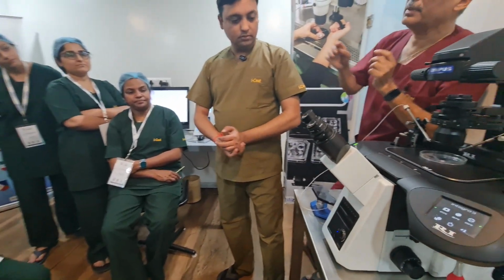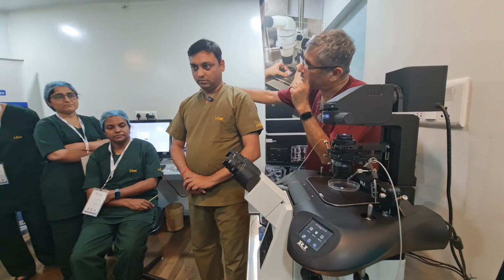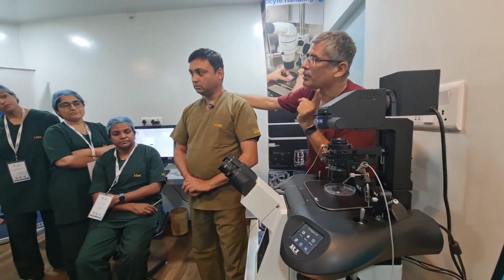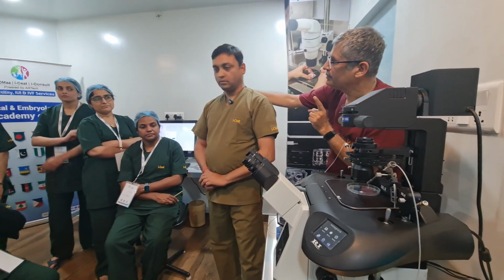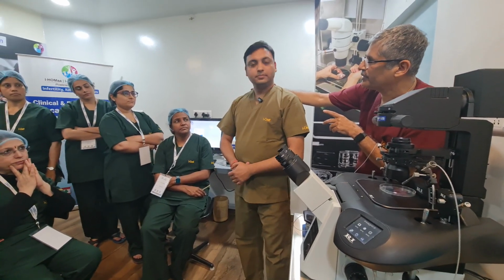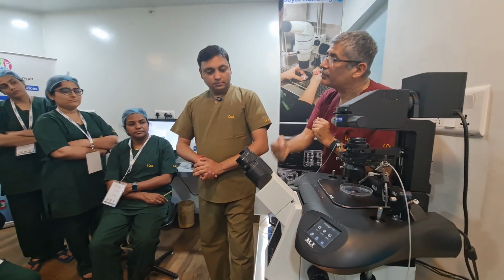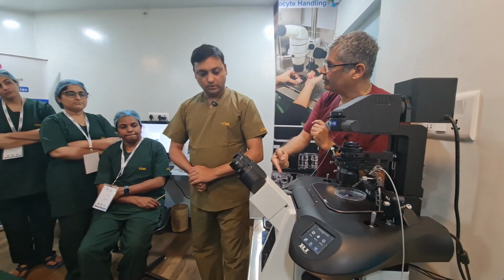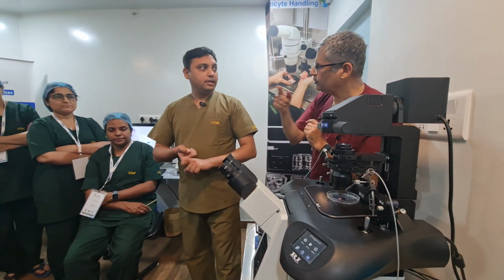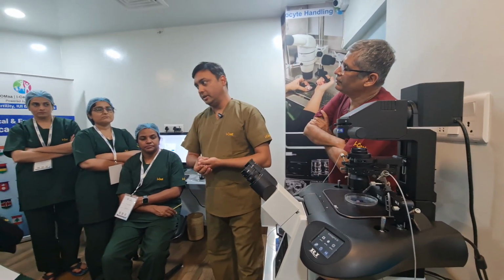Depending upon when you buy from any vendor, in case you don't go to the company directly, they may give you an old model. You know what happened with the big incubators, no? Orders were taken and not delivered. So always go for the latest model. Right now it is almost the IX73. The IX83 is also available, but it is a little costly, so people are going for the IX73.